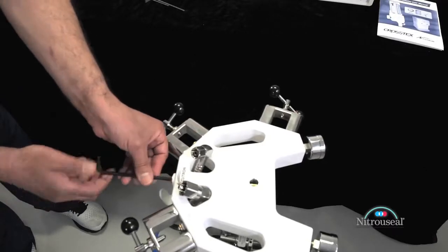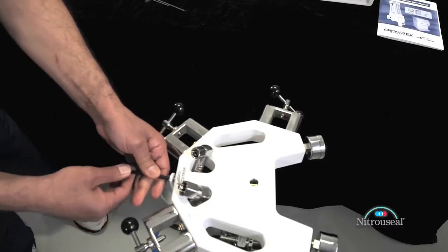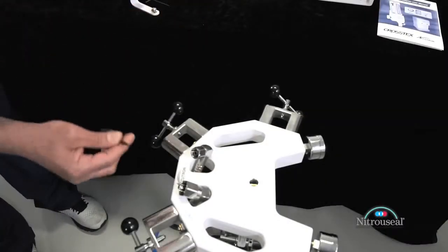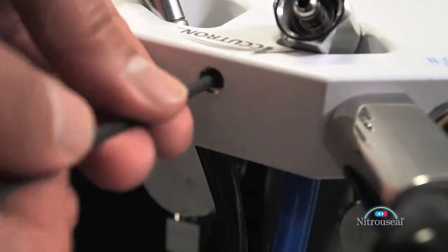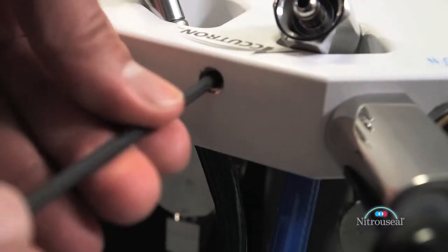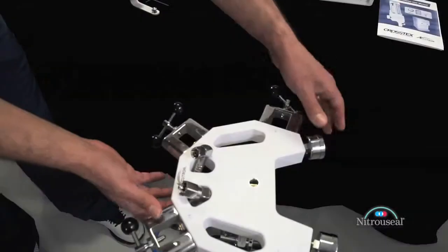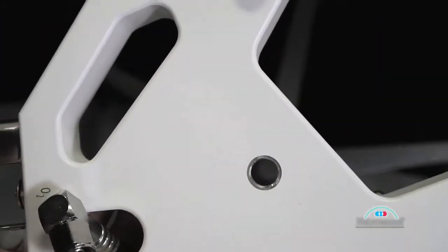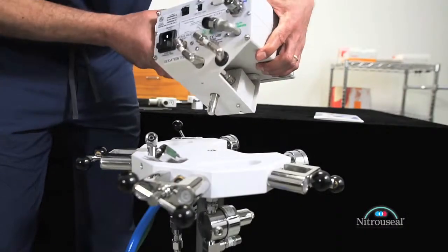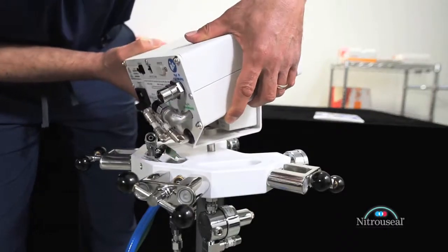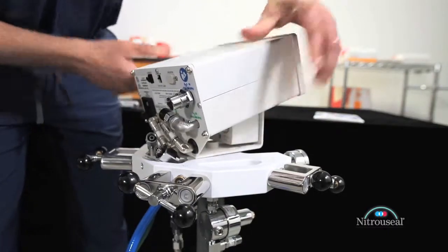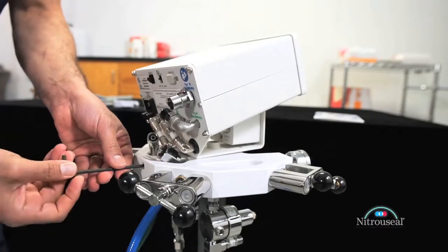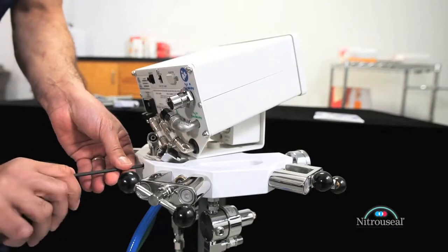To get started, remove the hook from the back of the stand using the largest Allen wrench supplied. Then use the medium Allen wrench to loosen the set screw. Tilt the stand so that the central pin disappears. Insert the post on the bottom of the flow meter into the central receptacle on the top of the stand, and using the medium Allen wrench, tighten the set screw on the back of the manifold bracket until the flow meter is securely attached.